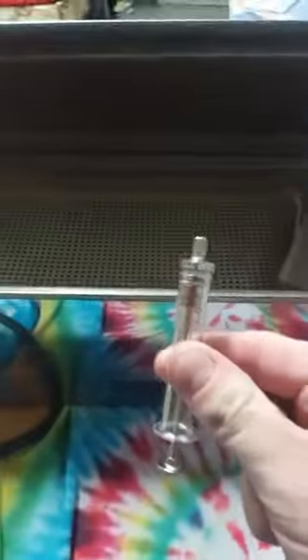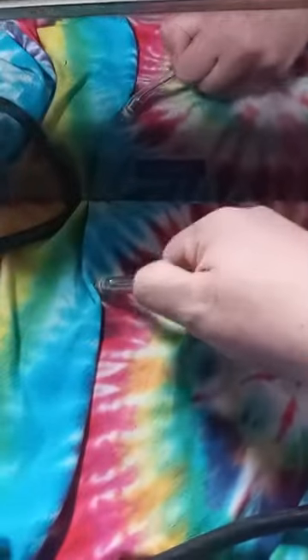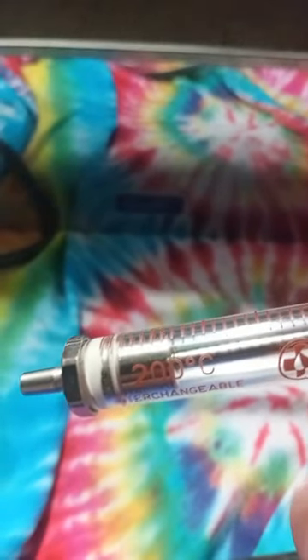This syringe did not come with it — I bought it separately. This particular syringe is from Russia. It's kind of hard to do one-handed. This is a glass hypodermic syringe. As you can see, it says 200°C — 200 degrees Celsius — that's how much heat it could take.